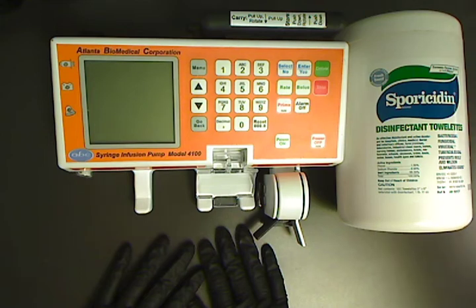This video will properly demonstrate how to clean your ABC model 4100 syringe infusion pump prior to returning it for service.